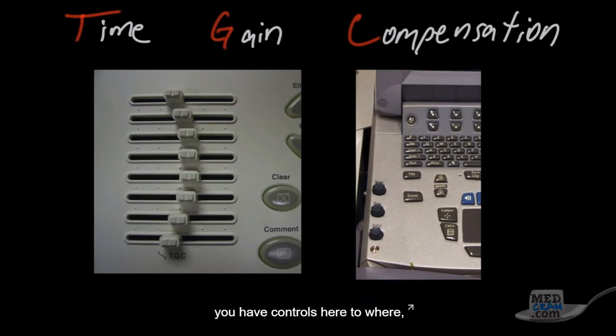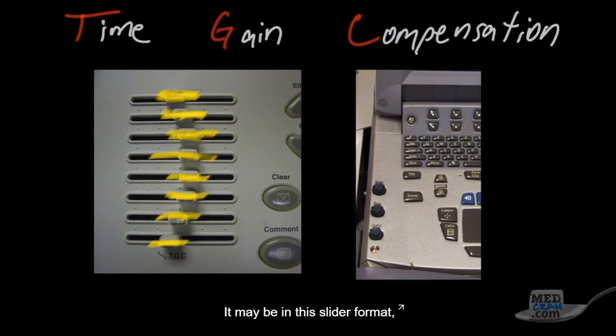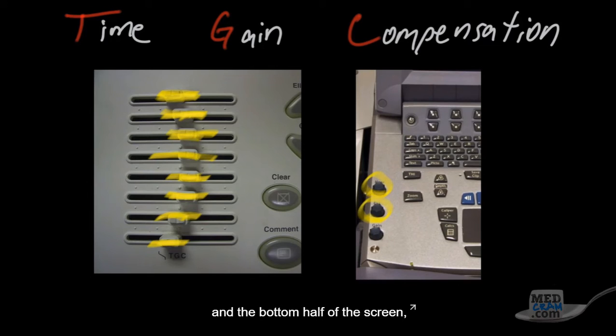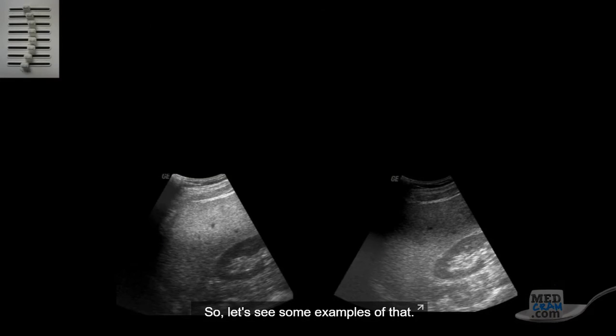And therefore, you have controls here to where on the screen, you can adjust gain at varying levels from top to bottom. It may be in this slider format, as depicted on the left, or it may be in this format where just the top half of the screen or the near field is adjusted and the bottom half of the screen or the far field is adjusted. So let's see some examples of that.